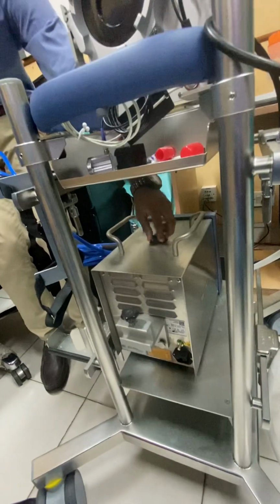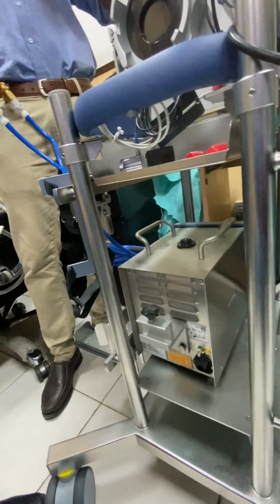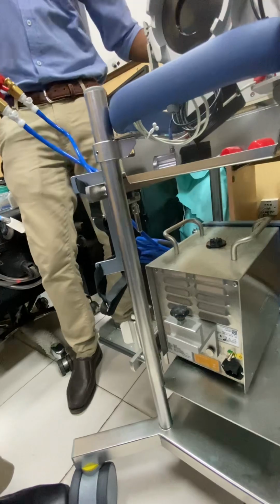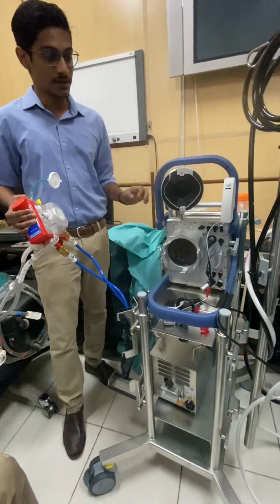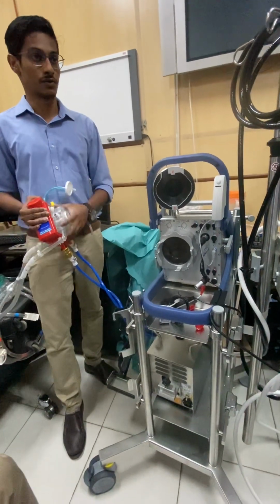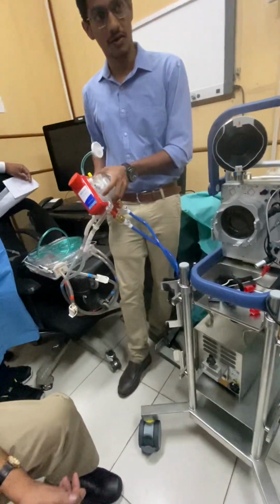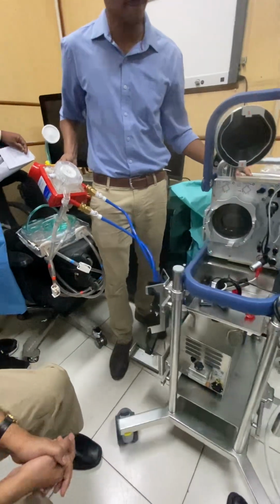See, first thing, water is only recirculating. It will run out only if there is any leak while we are using it. Once we use it, we will release it. It depends on how frequently you are using it. It's not recommended to keep the water in it. You can just open it and circulate, and it will come out.